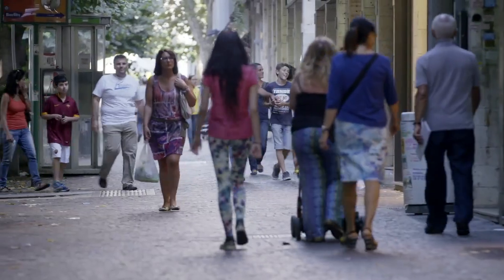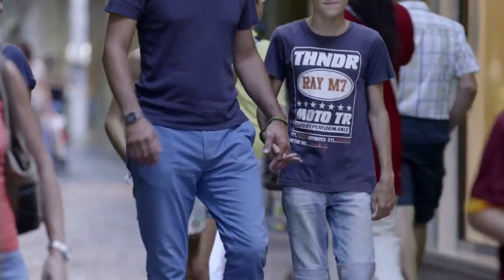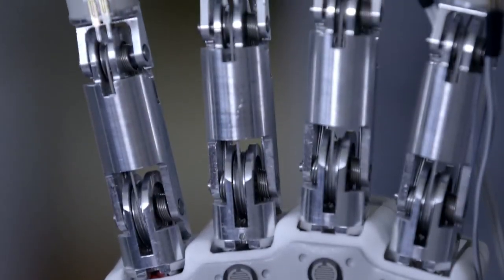But something is still missing. A sense of touch. What if the signals could go both ways, and the brain could interpret what the artificial hand touches?